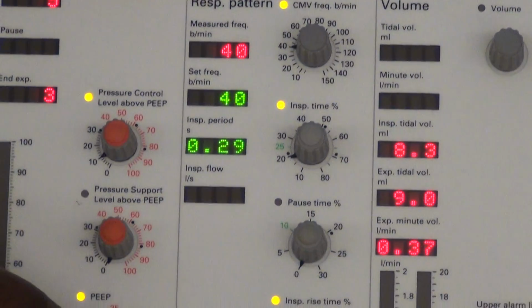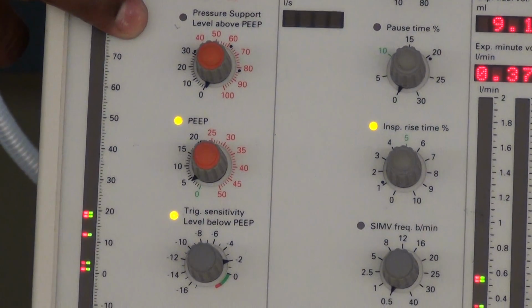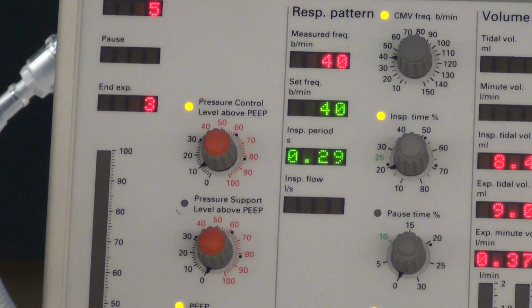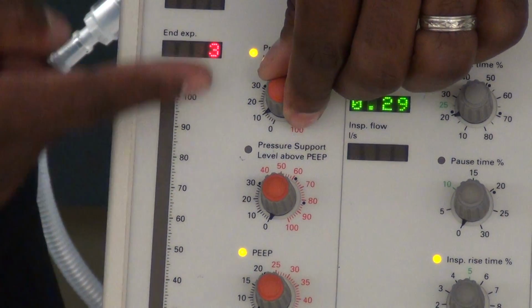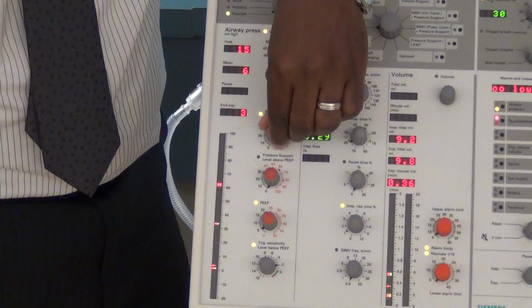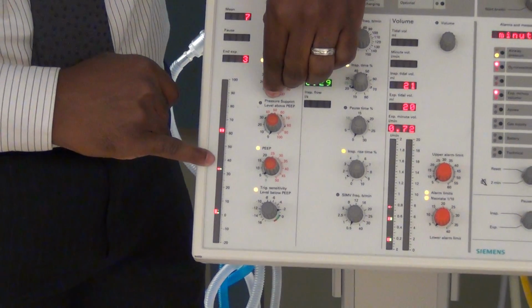These knobs, which are orange and gray, are what we call dependent knobs, meaning that we can set one of these values, but just realize it may be influenced by something else. An example of that is right now, for demonstration purposes, I'm just going to adjust my peak inspiratory pressure. Okay? And let's max out my alarm so it doesn't beep at us. All right, so notice my peak inspiratory pressure, which is right here. I'm going up and down on that. All right?